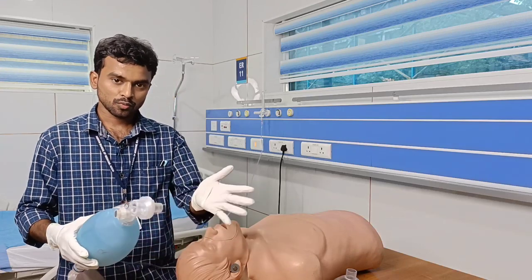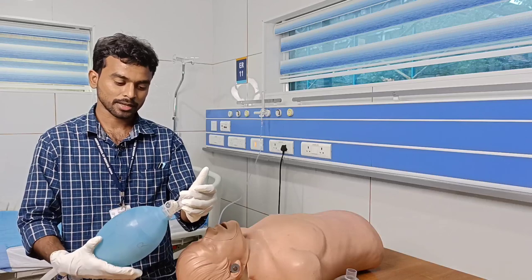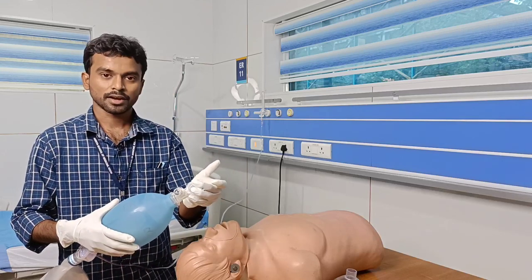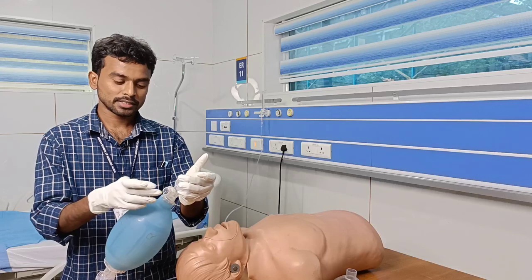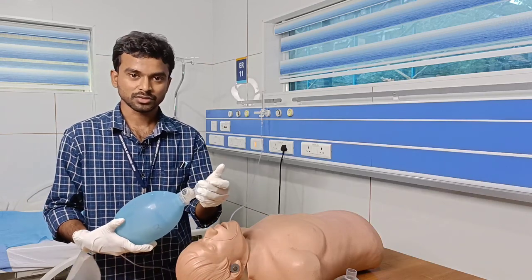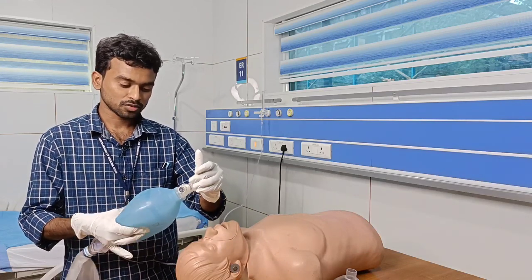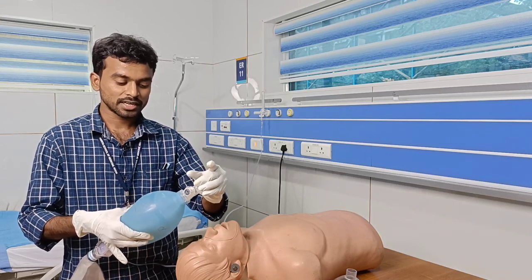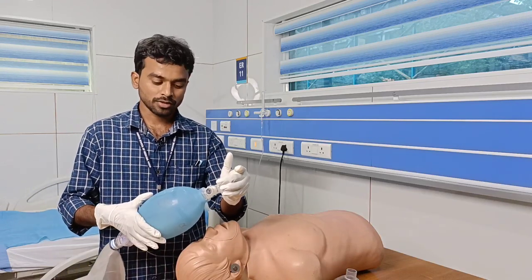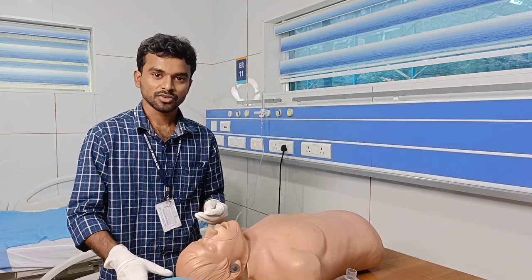The second check: occlude the outlet end, then squeeze the bag. The APL valve — the pressure releasing valve — should open, and you should feel some resistance. Doing this, I have occluded the outlet end and I am squeezing. The pressure releasing valve is opening and I am feeling some resistance. We can conclude that this AMBU bag is in good working condition. Checking the functionality of the AMBU bag is very important before doing the procedure.